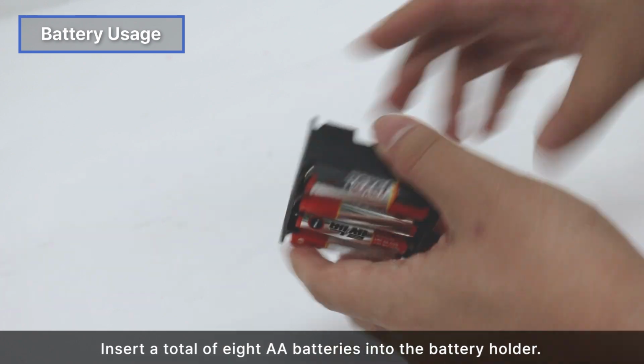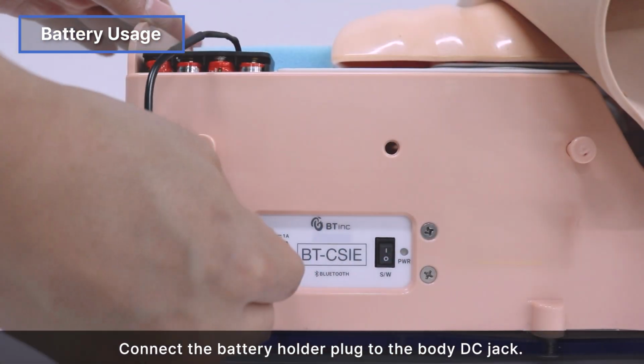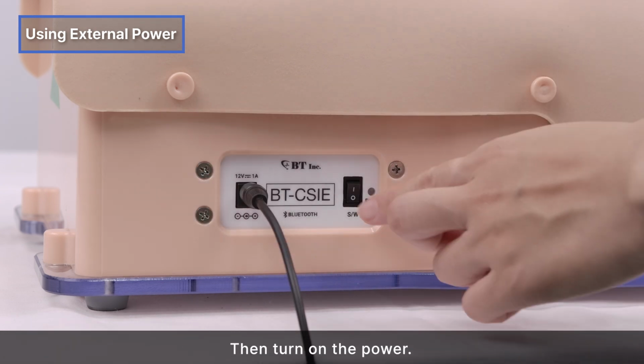Insert a total of 8 AA batteries into the battery holder. Make sure the polarity is correct. Connect the battery holder plug to the body DC jack. If using an external power source, connect the provided power adapter. Then turn on the power.